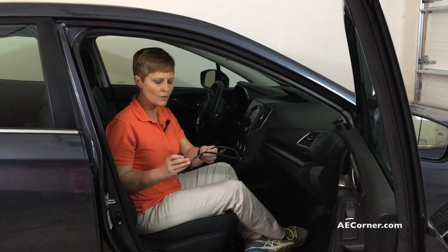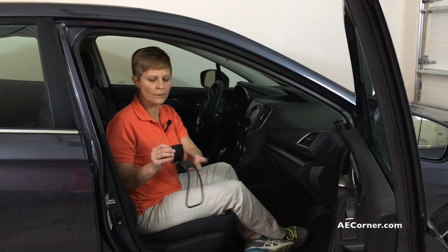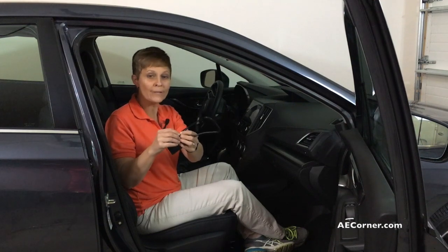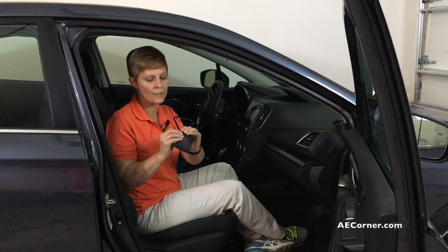So I'm going to show you how to attach this. When you do attach this, there are little rubber knobs here that actually go through these holes — that's what's going to fasten it. They are a little bit difficult to get fastened, so you've got to give a little force into those holes to get it fastened.